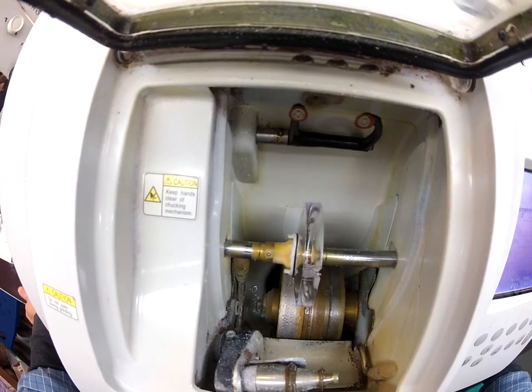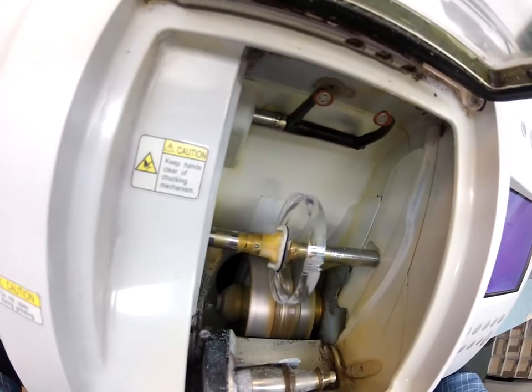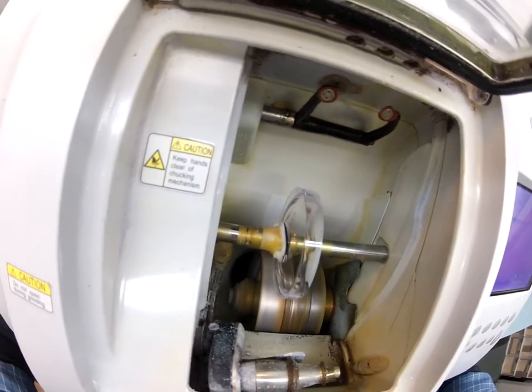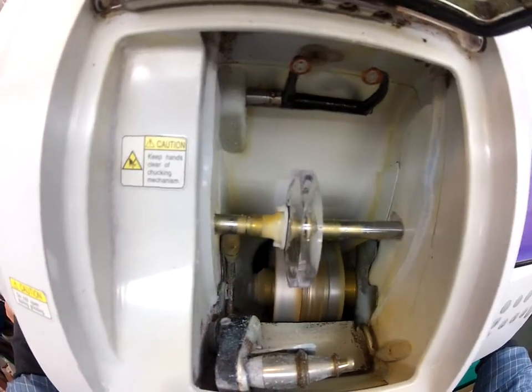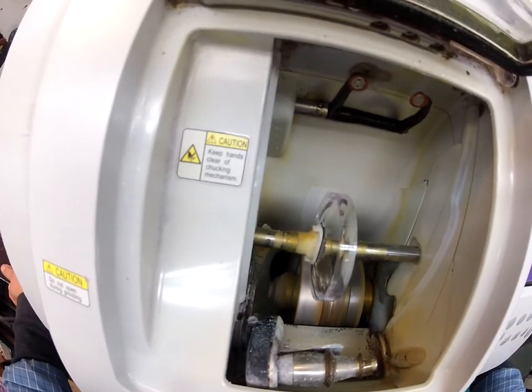It will get a little bit loud here in a moment and I'm going to have to close the door. But for now, once you see your lens strike the cutting wheel — don't worry, your lens will not be that thick when I'm done with it. It's going to be even thicker. No, I'm just messing with you, Thurl.